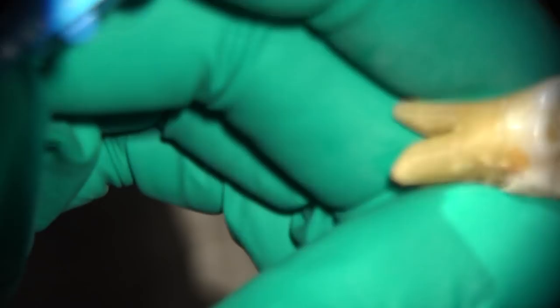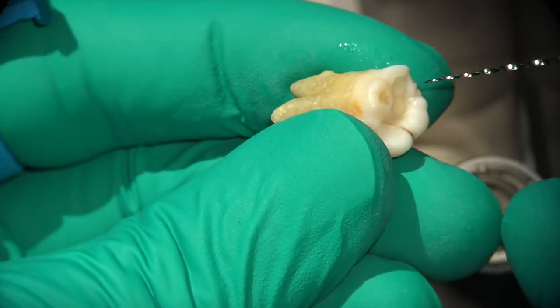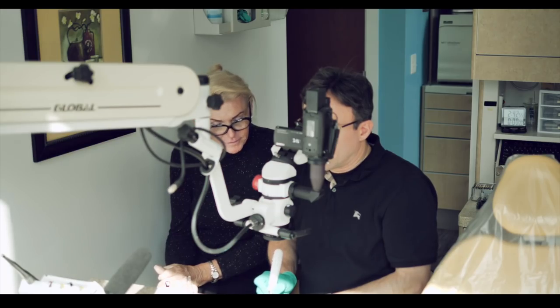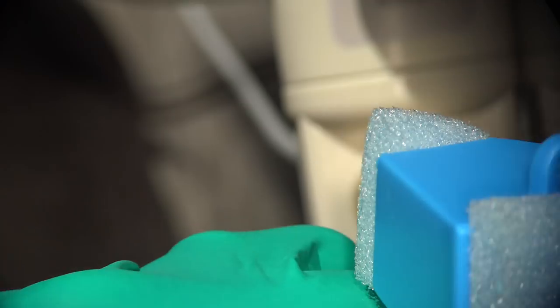So let's just go into this distal canal that has that weird distal type of inclination. We're going to put that on the endosync and turn the unit on, set it up at an OTR of 0.6, 500 RPM. And here we've got the distal canal, just basically taking three tiny bites out of it. And ultimately, what we're trying to see is just the curvature.